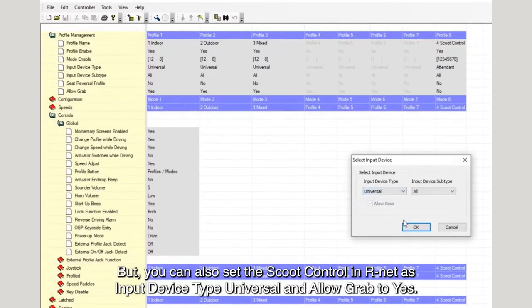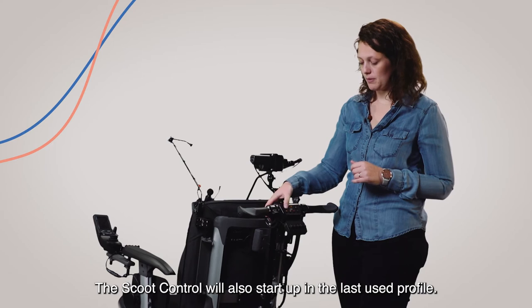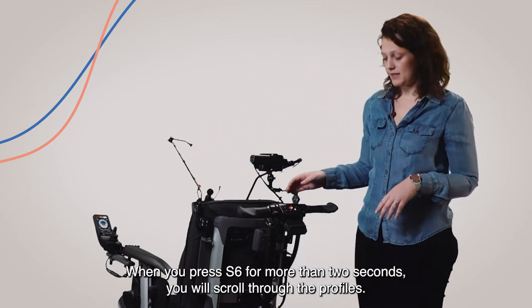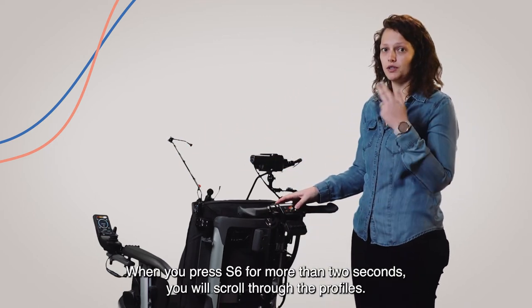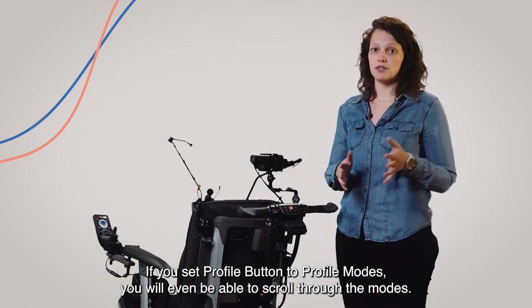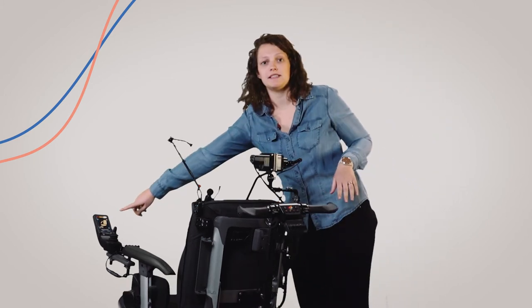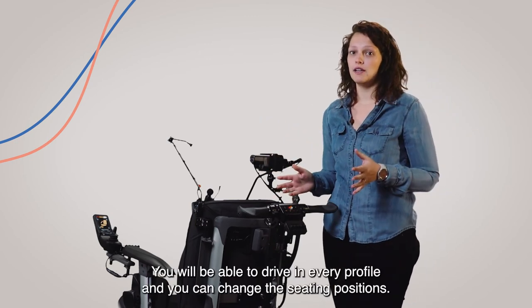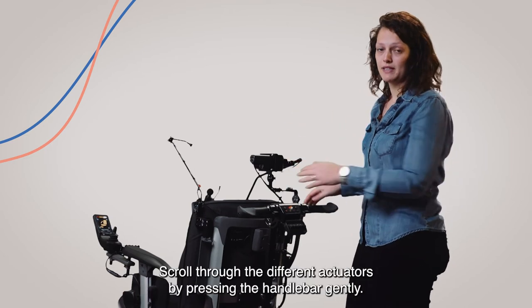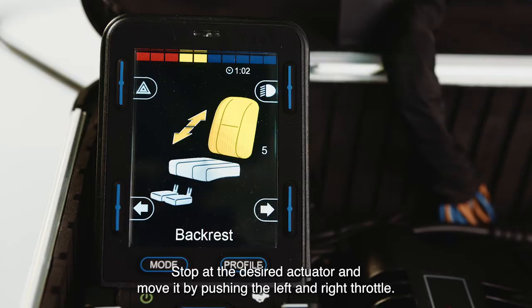You can also set the scoot control in R-Net as input device type universal and allow grab to yes. The scoot control will also start up in the last used profile — now this is profile 1. When you press the 6th button for more than 2 seconds, you will scroll through the profiles. If you set profile button to profile modes, you will also be able to scroll through the modes, such as seating positions. You will be able to drive in every profile and change the seating positions with the scoot control. You can scroll through the different actuators by pressing the handlebar gently, then stop at the desired actuator and move it by pushing the left or right throttle.